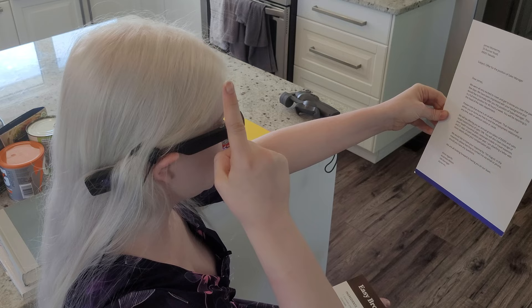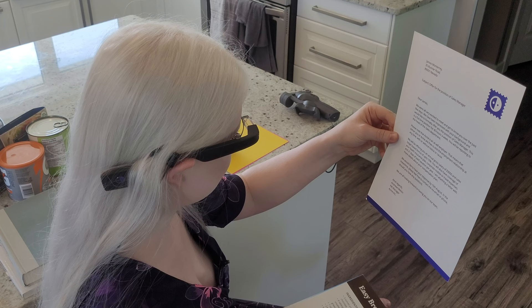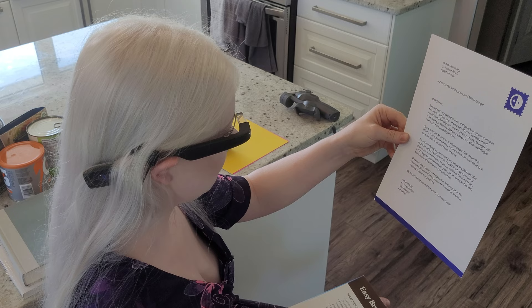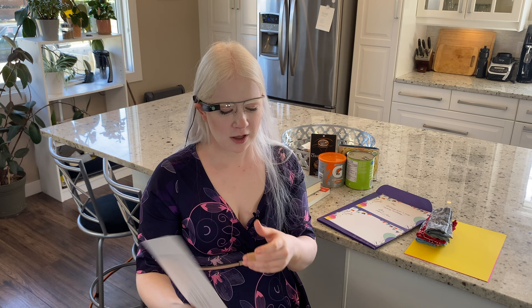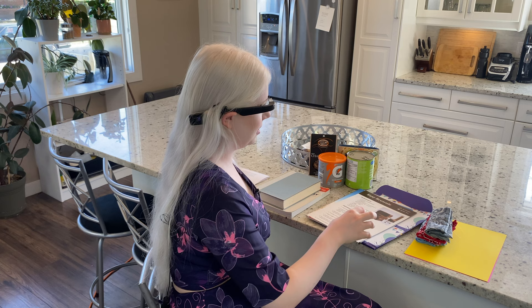I'm going to start instant text again — we swipe down to move backwards through the menu with one finger. Double-tap again. It reads: James Monterey, 35 Runner Road, 89001 Nevada. Subject: offer for the position of sales manager. Dear James, we were all very excited to meet and get to know you over the past few days. We have been impressed with your background. We can double-tap to stop reading. It seems to do pretty well on that.